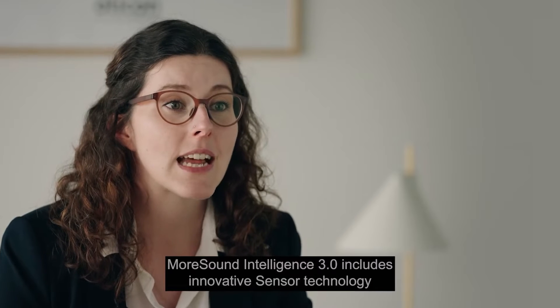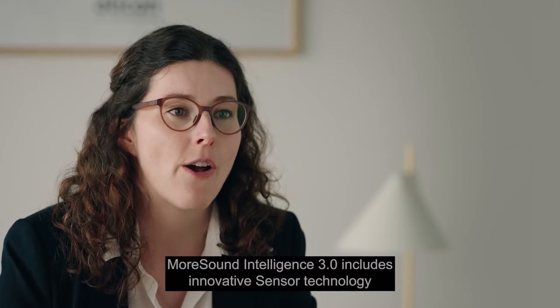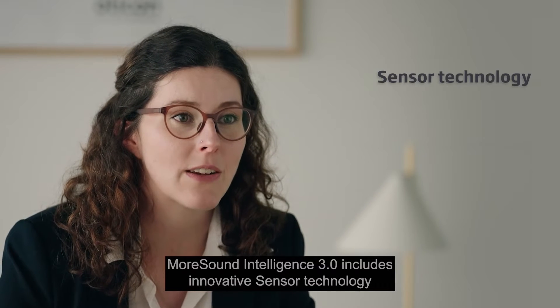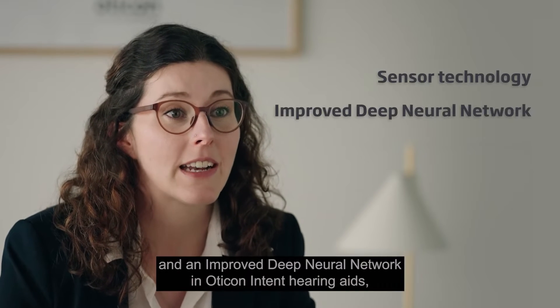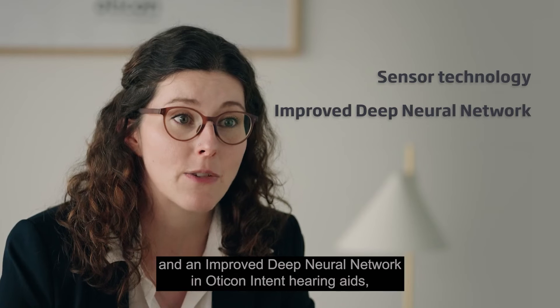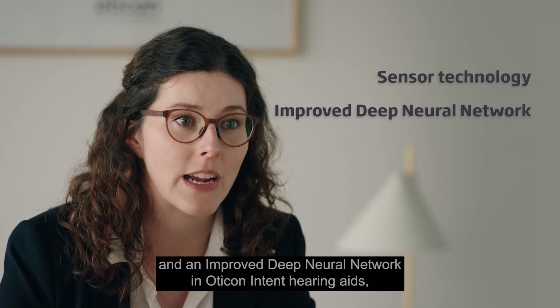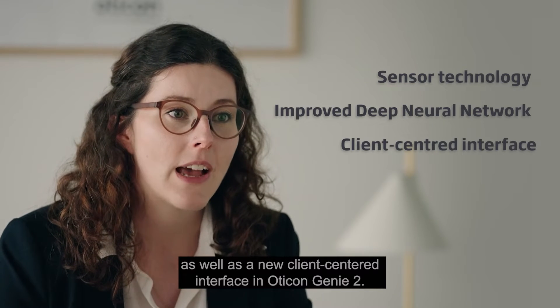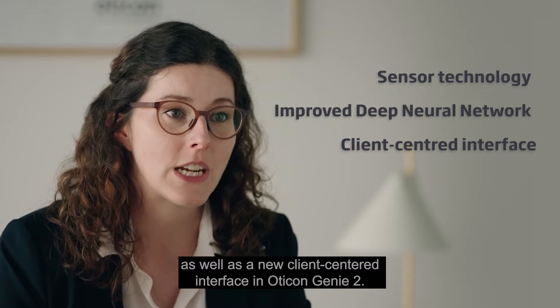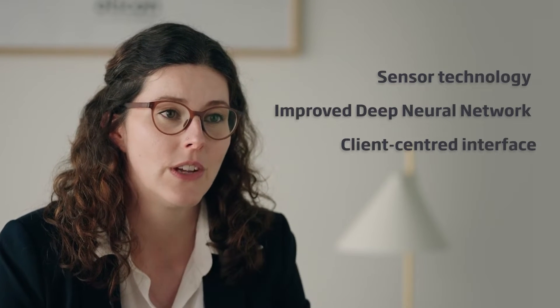Moresound Intelligence 3.0 includes innovative sensor technology and an improved deep neural network in Oticon Intent hearing aids, as well as a new client-centered interface in Oticon Genie 2.0.